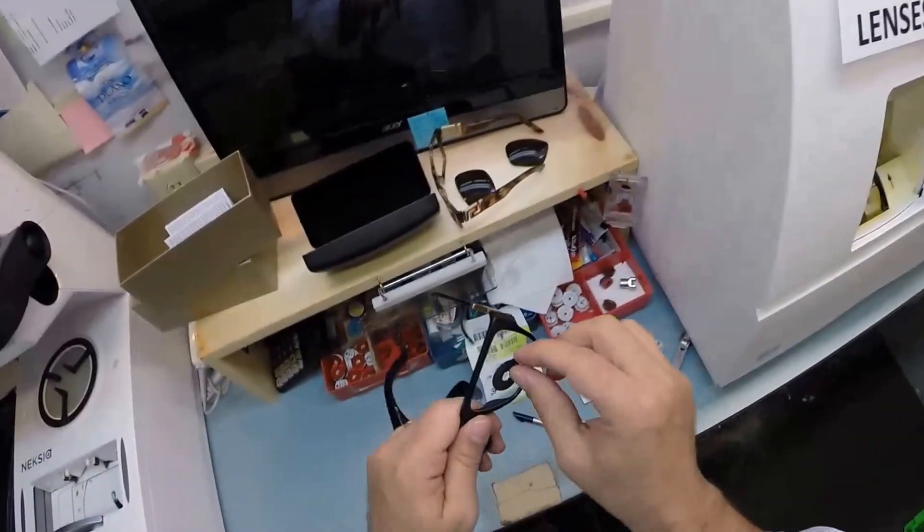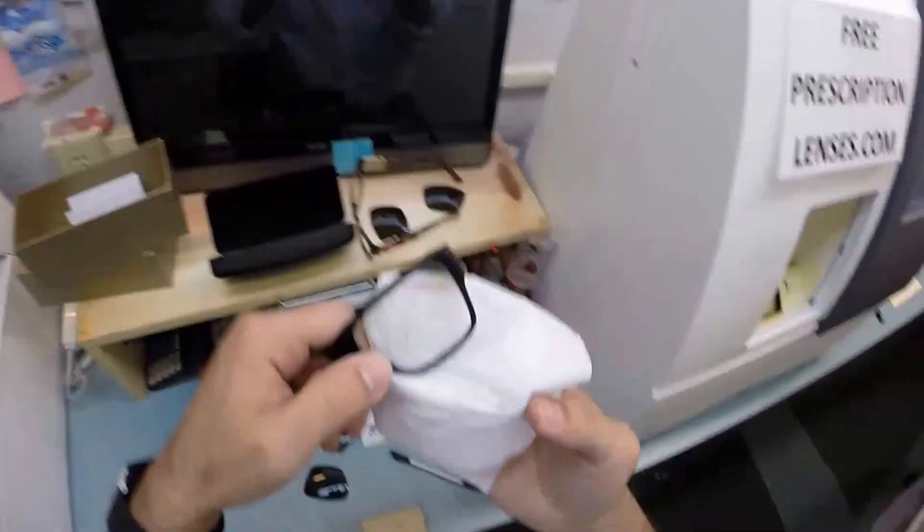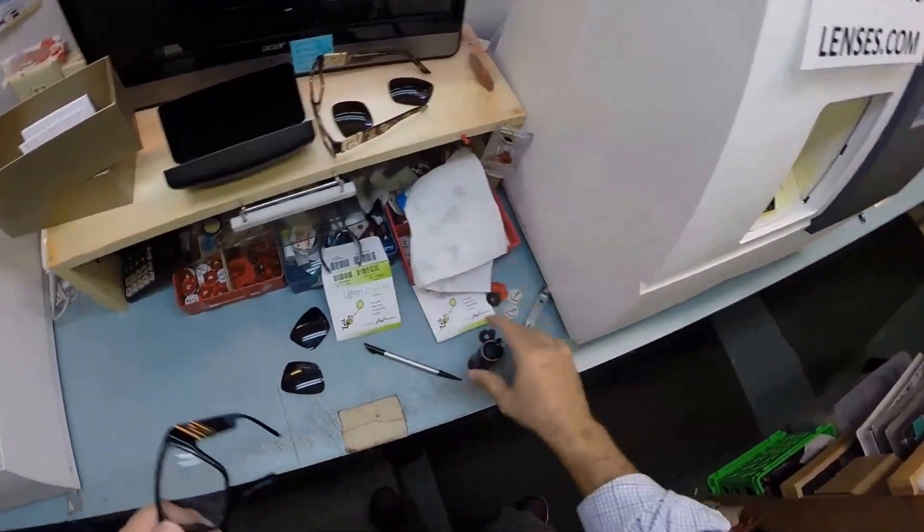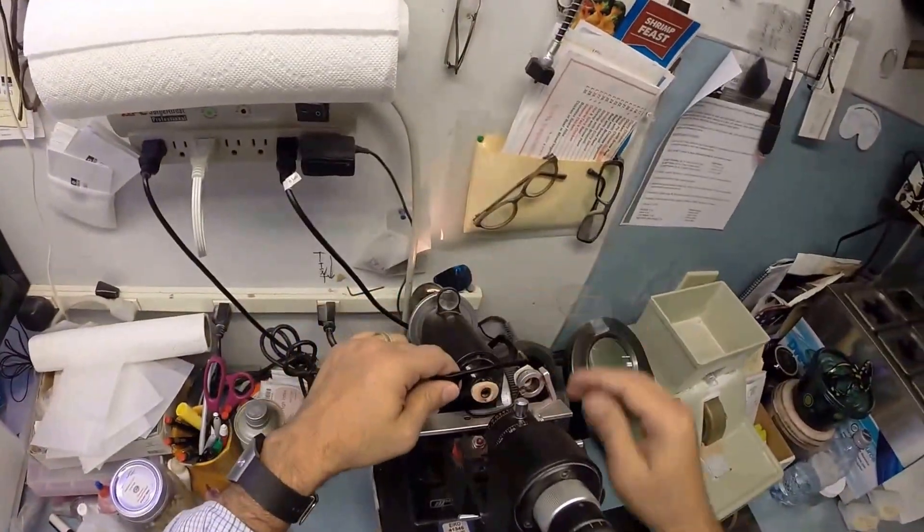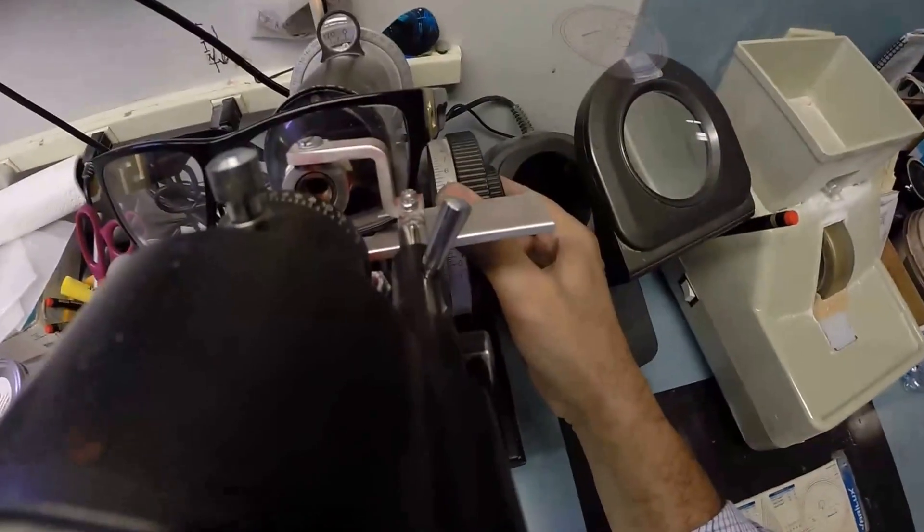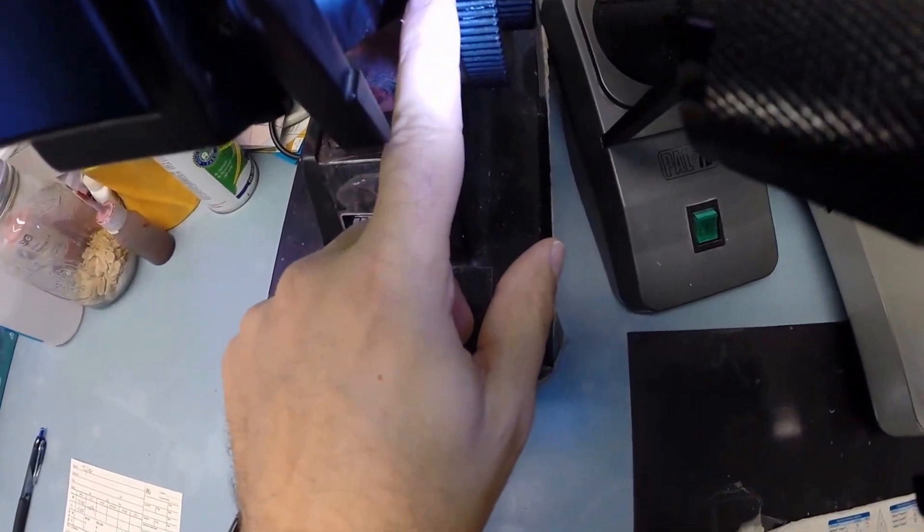Let's take this block off. Pull off that sticker. Let's dry everything off, leaving that red dot on there, which is your pupillary distance. We're going to verify that this is the same prescription in the left eye. Minus one. Look at that. I couldn't have cut that any better if I'd done it myself.